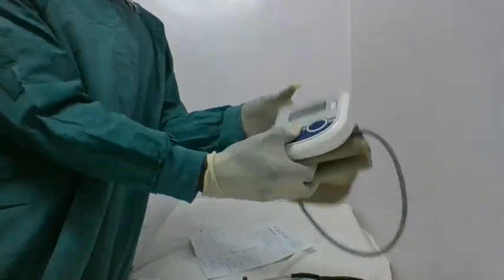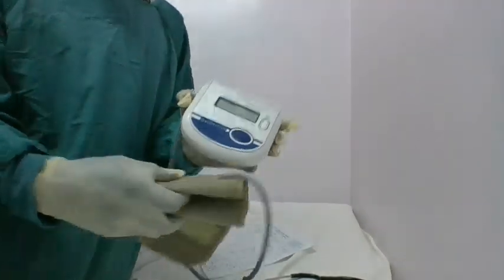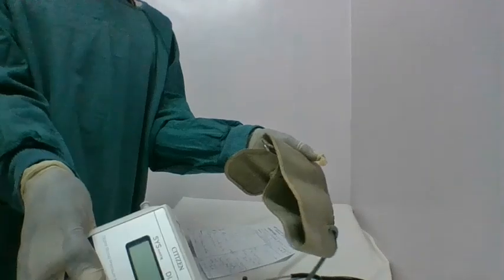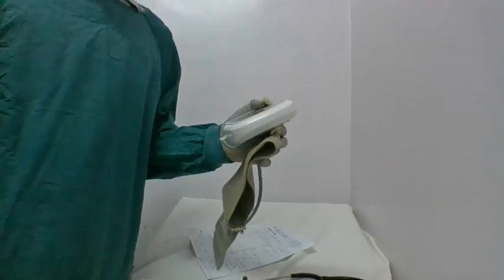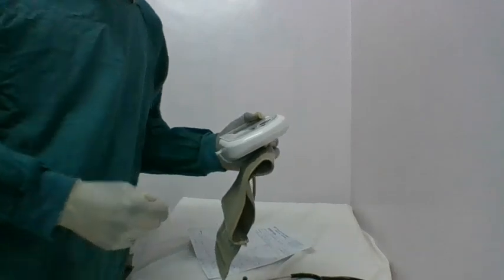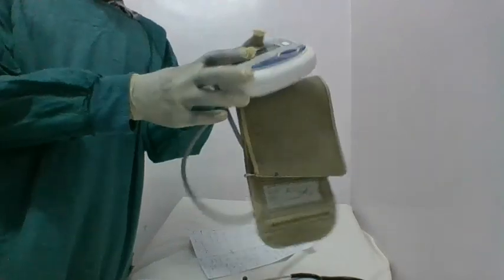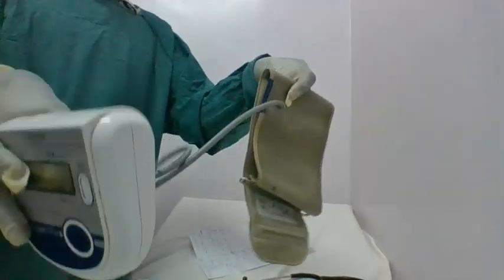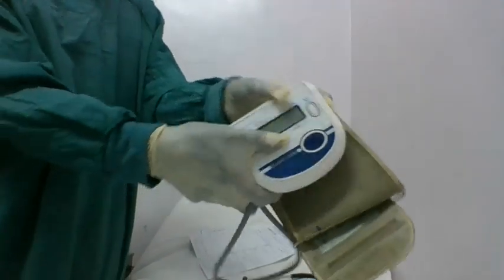So this is a blood pressure machine, basically, guys. We have different types of blood pressure machines. Basically, maybe this one, I'm going to use it in the outpatient department. Now, when it comes to the ward, we have the monitor, the one with the monitor display. You just move it around with a trolley. So that's why you use it in the ward department. But for quick reading or taking the blood pressure reading, maybe in the outpatient department, we are going to have this. Let me call it portable. This is the portable blood pressure machine, basically.